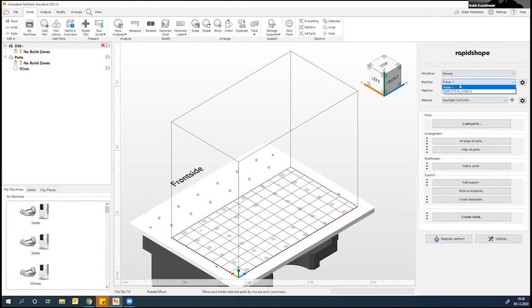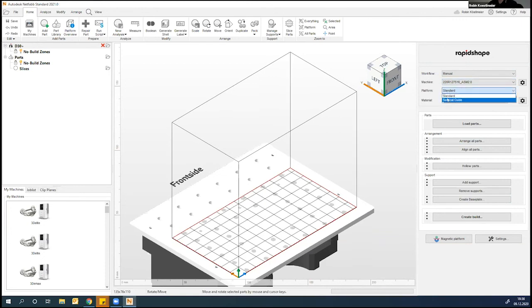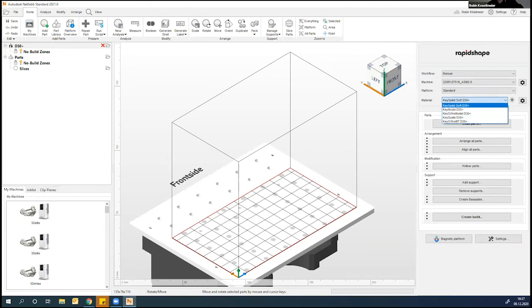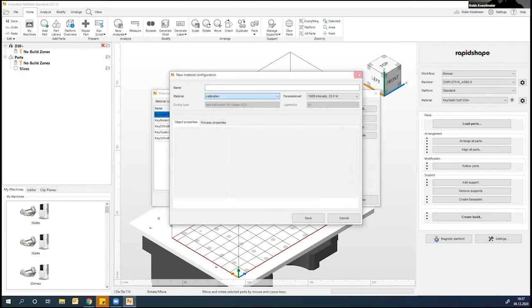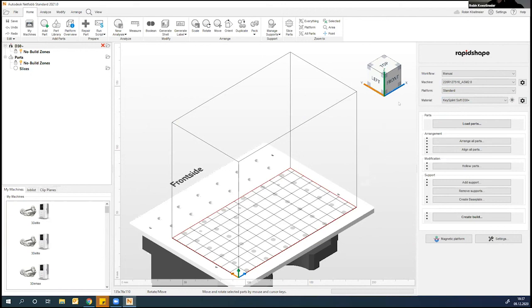As a next step, you select your printer — in this case I'll use our ASM 2.0 machine, which cuts the job automatically. You can select between two different platforms: Surgical Guide is a special platform for surgical guides, but we'll use the standard one as we are printing a splint. Last step is selecting the material — all the KeyModel and KeySplint materials are available. You can add more via the gear icon, where you'll see a lot of materials available, all validated by Keystone and RapidShape working together.